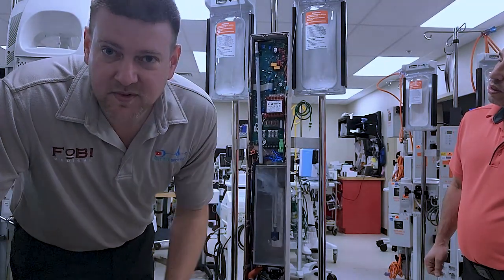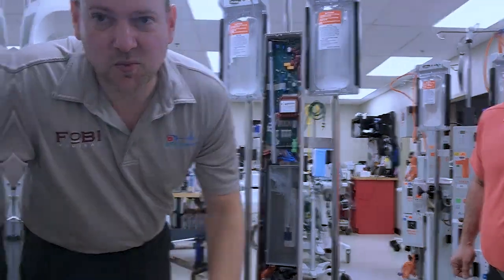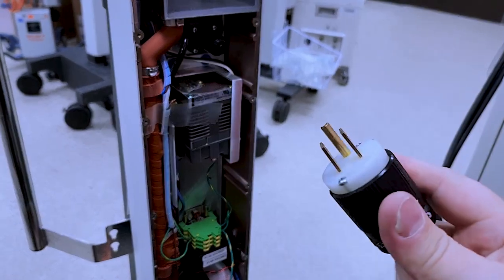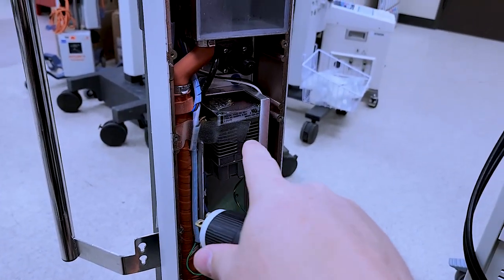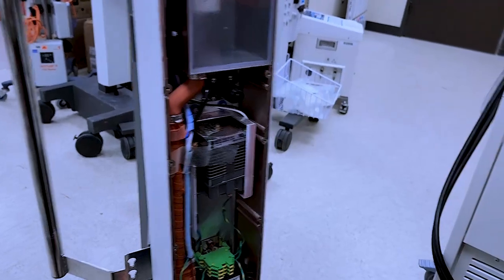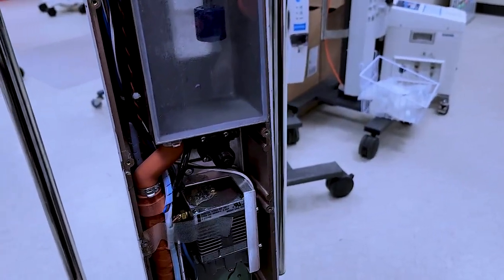So, two Phillips screws, steel cable. Seems like it's working. We're going to go ahead and plug it in and we're going to test out the air pump right there. It was excessively loud yesterday. Let's go ahead and see what's going on.